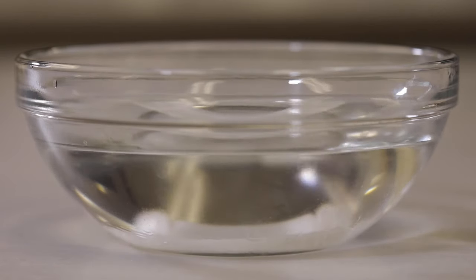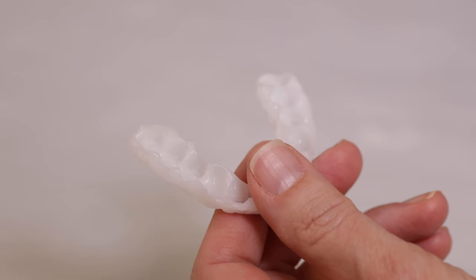It's normal for your formed guard to appear uneven and bumpy.